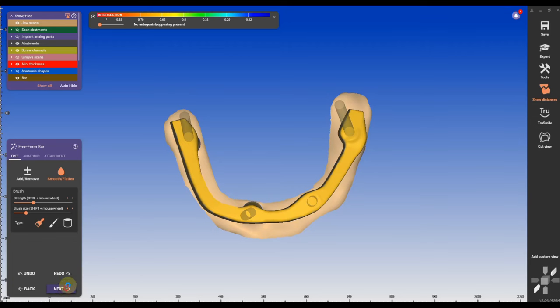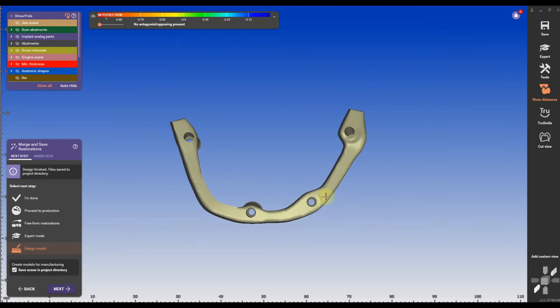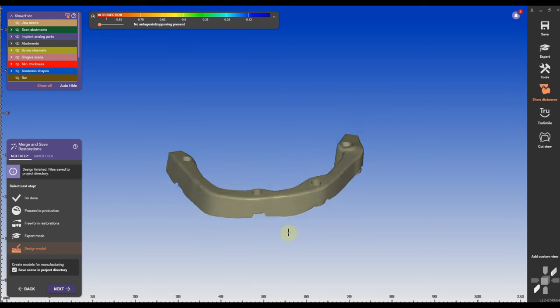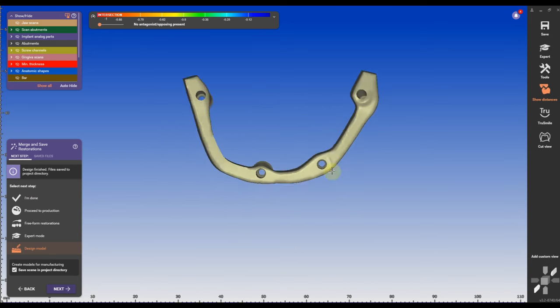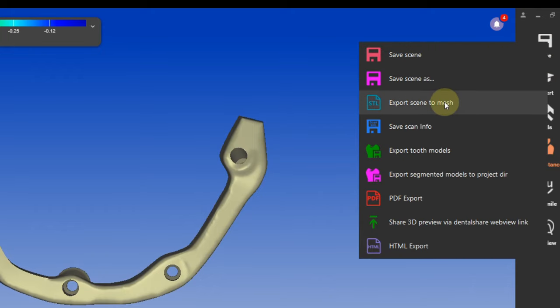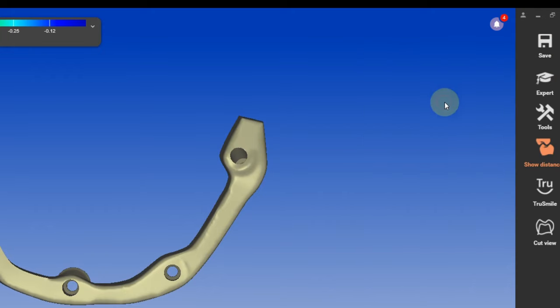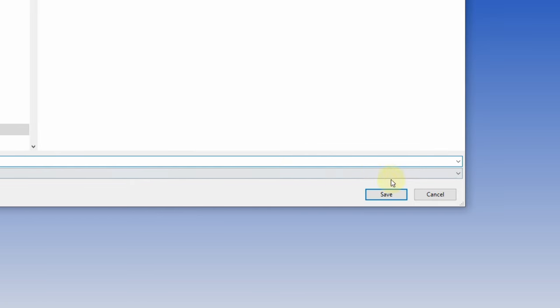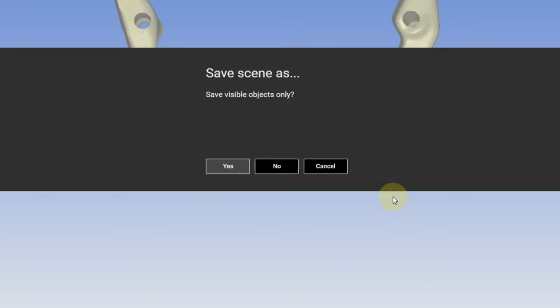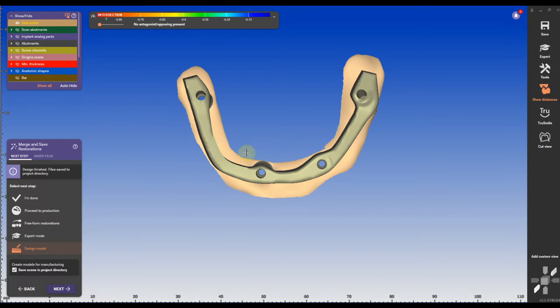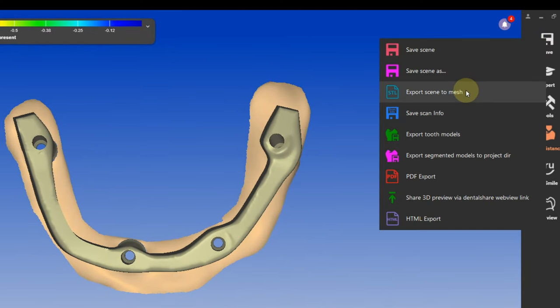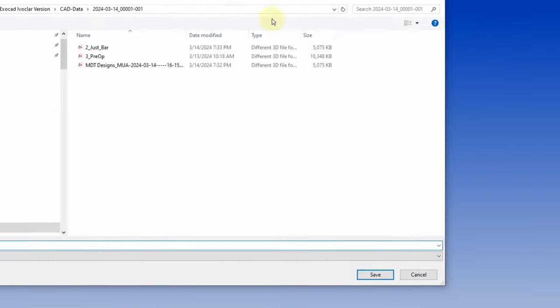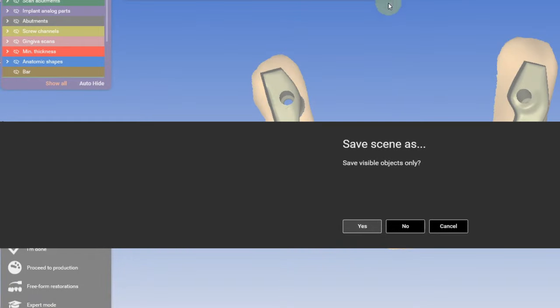Now the bar is completed and it looks beautiful. I'm going to go to save, right click, export scene as a mesh and I'm going to name it number two just the bar. Then I'm going to click okay, save and save it in the same coordinate system as before. I'm going to bring in my jaw scan, do the same thing, export to mesh and I'm going to call it one and bar with base. It's my base that I'm going to import later on in the next order form, same order system.